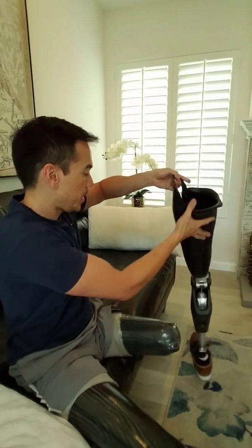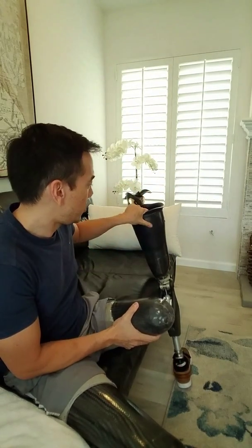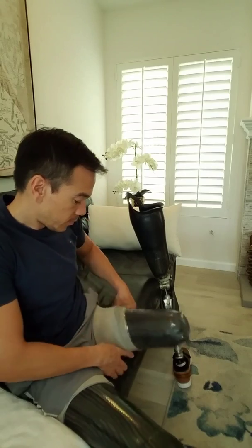So I'll pull out the pin — I put the pin back in there just for safekeeping. And this is the inner socket; these are the two walls. How does this stay on? This stays on by passive vacuum. This is a one-way valve right here, so it lets air out but doesn't let air back in. And then I have a sleeve at the top here.